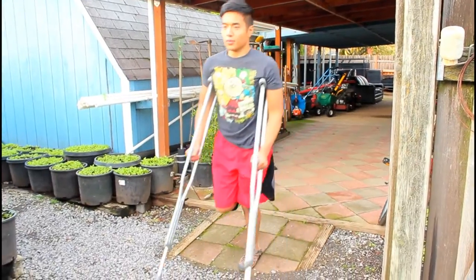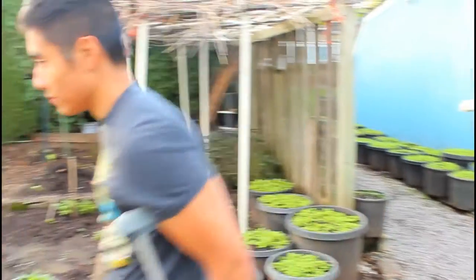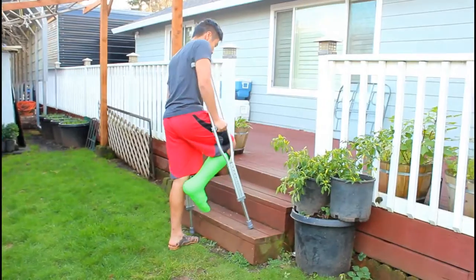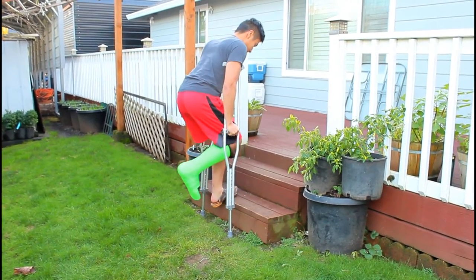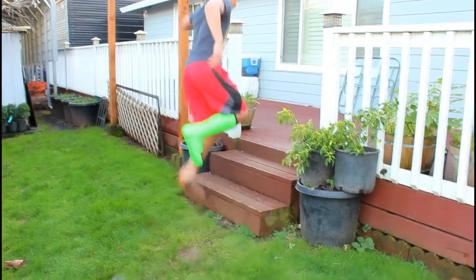Now to walk — do I really need to tell you this? All you do is you put your foot down, the one that isn't injured, and then you lunge forward. How hard can it be? And then to walk upstairs, all you have to do is make sure you have very good balance, be careful, just keep trying, and eventually you'll say forget it and just hop up the stairs.